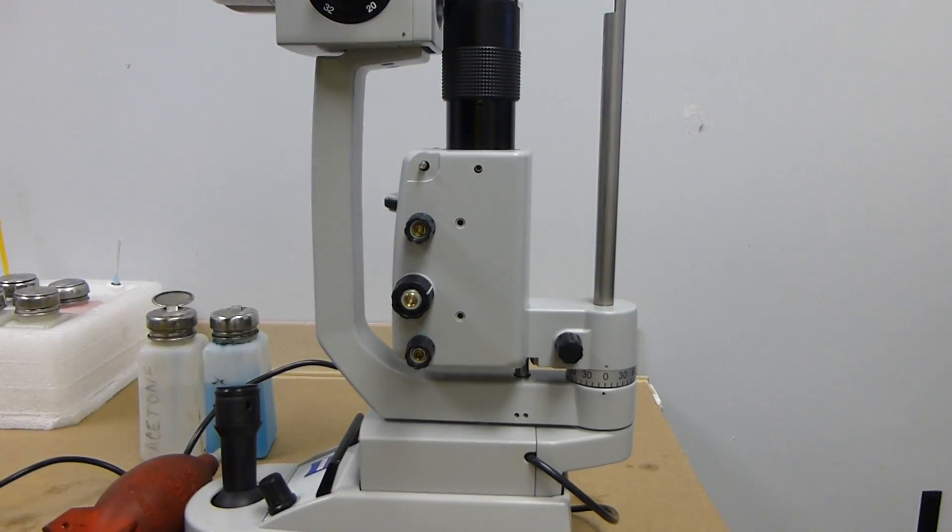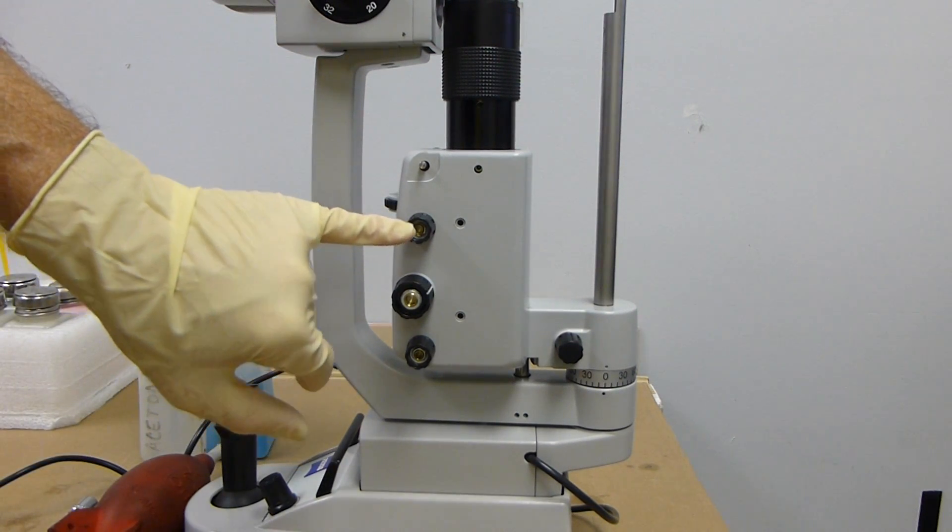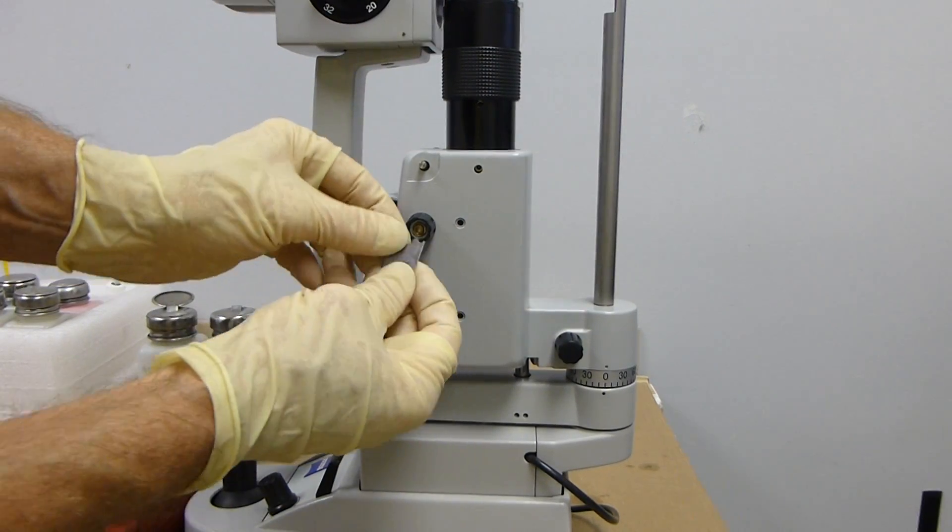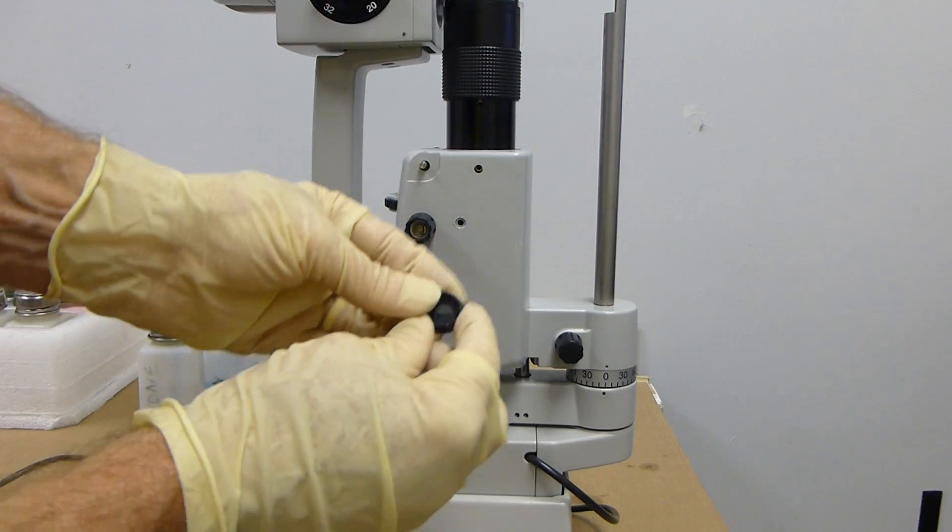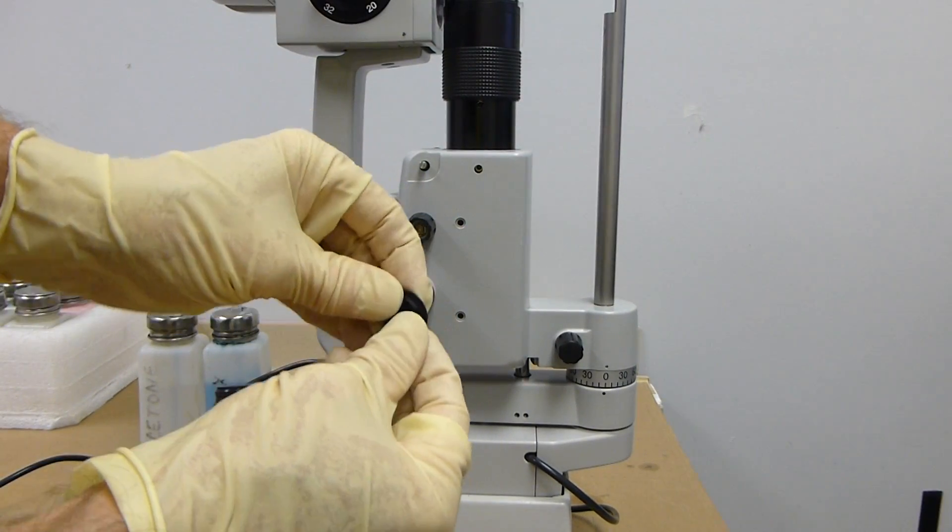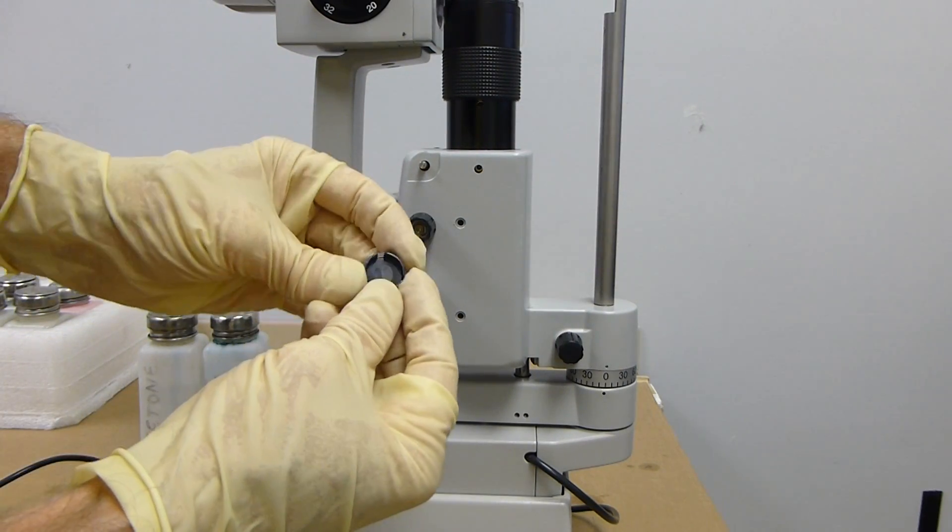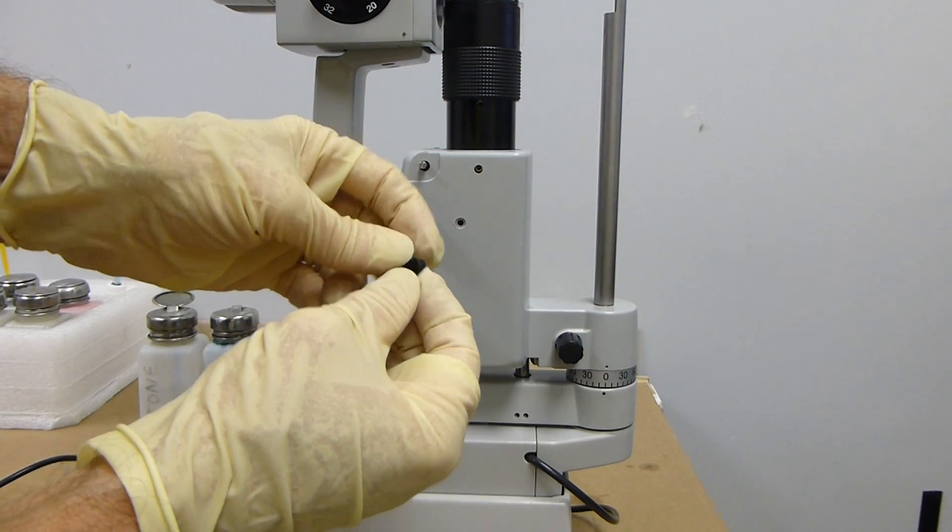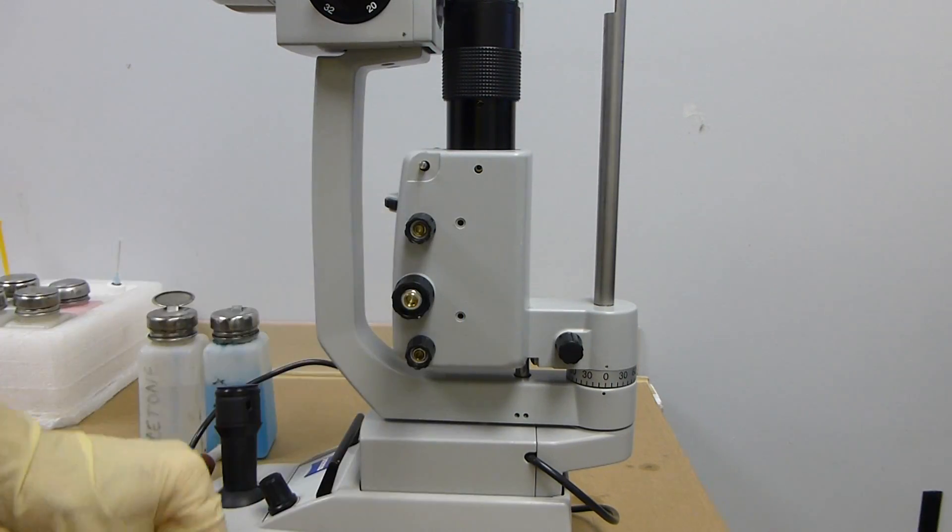These are 7mm or 9/32. You have to take the covers off to get access. Just remember, when you put the covers back on, there's little notches that correspond with the knobs that need to fit the same way they came off. There's little notches and tabs that match up, so be careful about that.